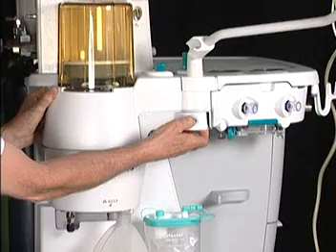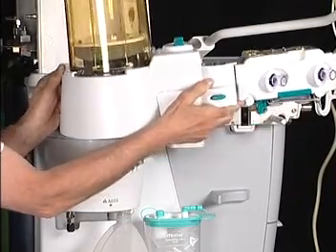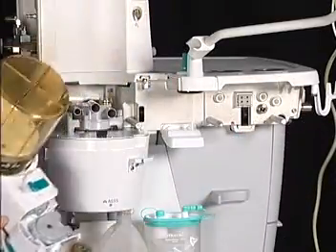Maintaining your hold on the ABS, slide the unit towards you until it is completely free from the mounting pins. You may carry the ABS in this fashion or by the rear handle alone.